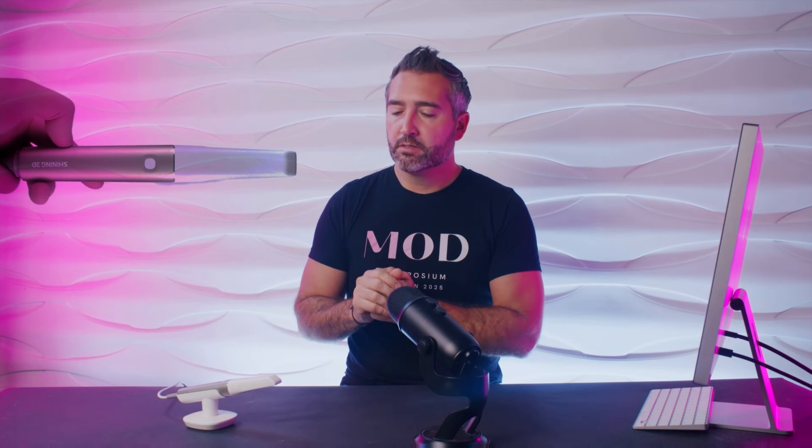That is my overview of the Shining Elite in a nutshell. I would say this is a winner — it ranks top amongst all scanners on the market. And then you throw in the intraoral photogrammetry component and it's just so impressive. It also works super well with modern scan body workflows like IO Connect from True Abutment. I'm going to make this probably my main scanner alongside my Trios 5, which I absolutely love. I still think there are some things the Trios 5 does a little better, like lower arch scanning on day of surgery — but it's not perfect either.